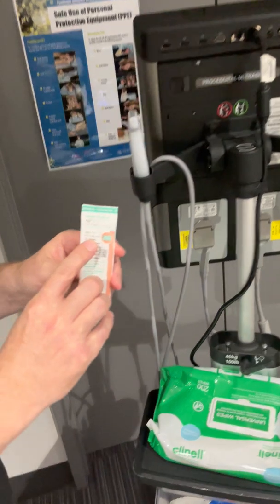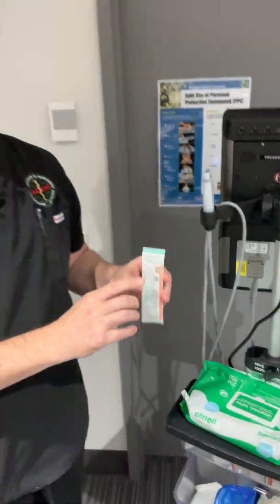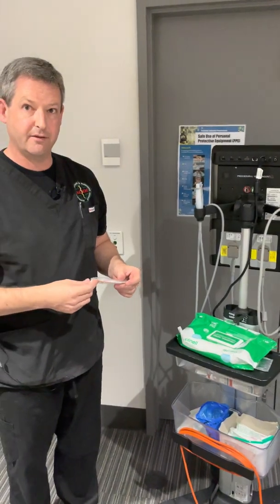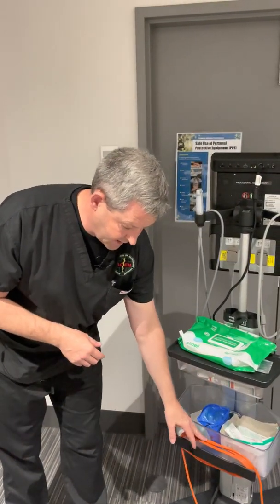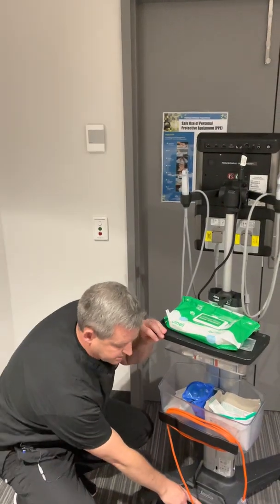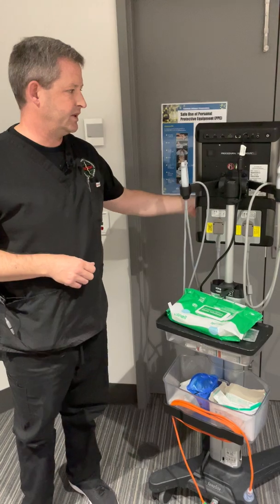Note that this is a 45 millimeter cannula as opposed to the usual 38 millimeter cannula, and is less likely to fail in the event of ultrasound-guided vascular access. Power cables are at the back — just be careful as sometimes the cable gets detached from the bottom if you have issues with charging.